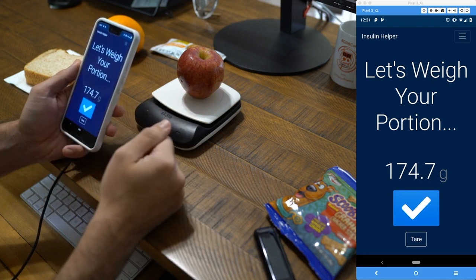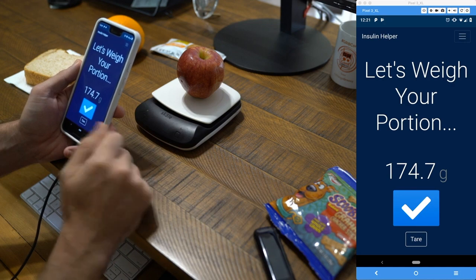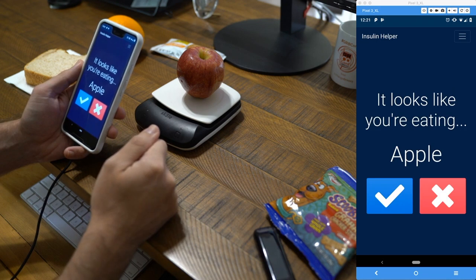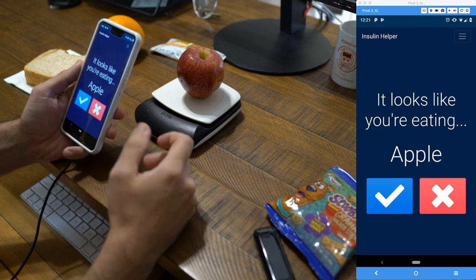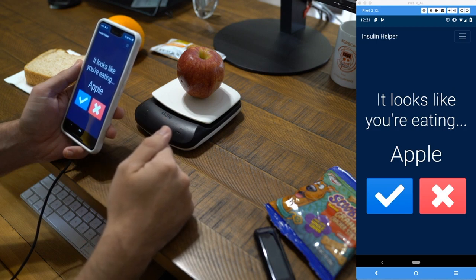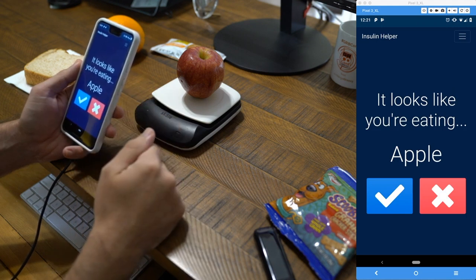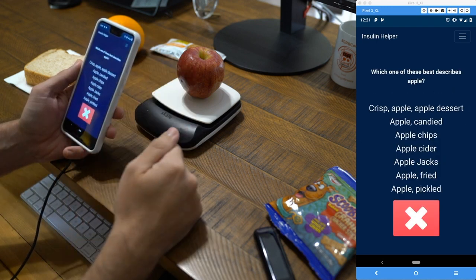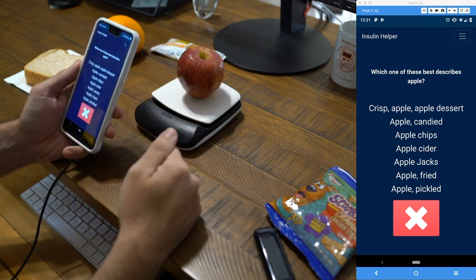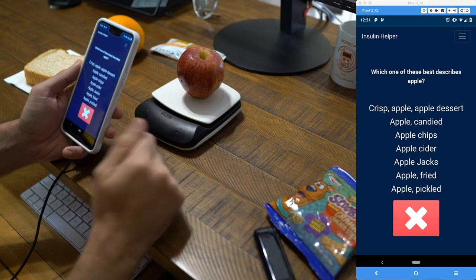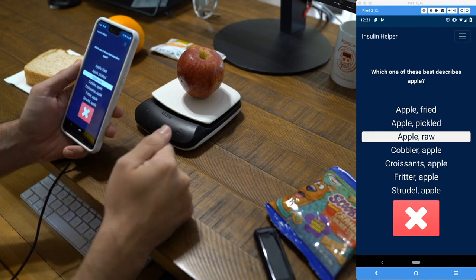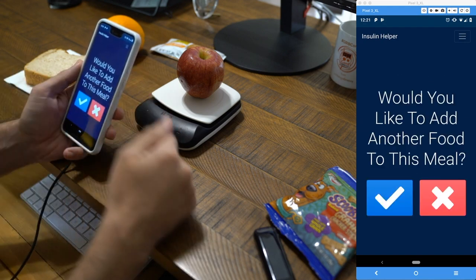We have 174 grams. If we had a plate on the scale we could tare that out first, but in this case we'll go with it and confirm. The application performed image recognition on the picture and identified an apple — which is spot on, that's exactly what we're eating. We confirm that, and it asks which of these best describes apple. It searched the USDA database for the keyword 'apple' and returns a list of matching foods. We select 'apple, raw' and the food is added to our meal.